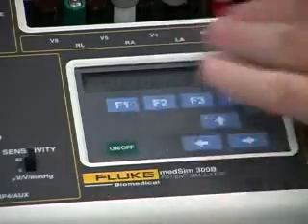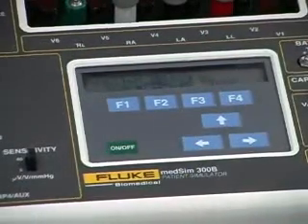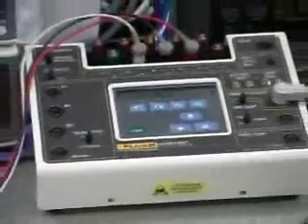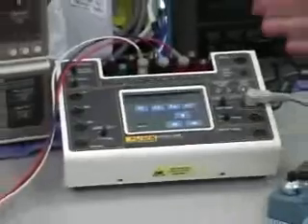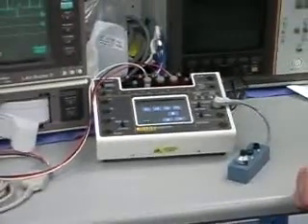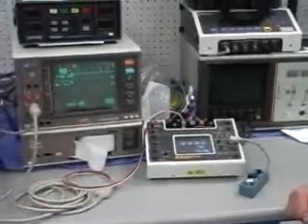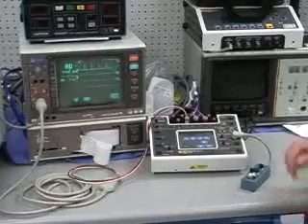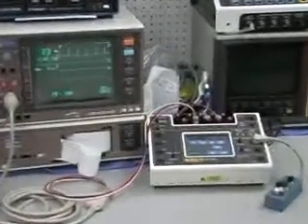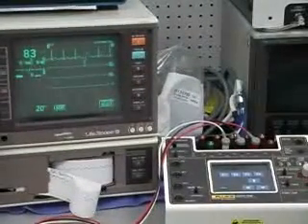And the rest of it too, we went through it a lot in detail, but it does have a lot of capability. So if it's something you need to do, we probably have it in there someplace. It'd just be a matter of finding it. Yeah. Respiration, basically all of your thoracic impedance type measurements that are looking for the changes in the chest wall resistance, we're able to simulate that with this.